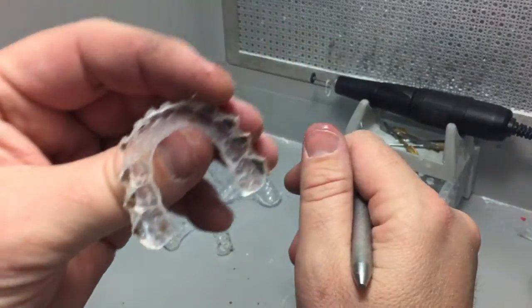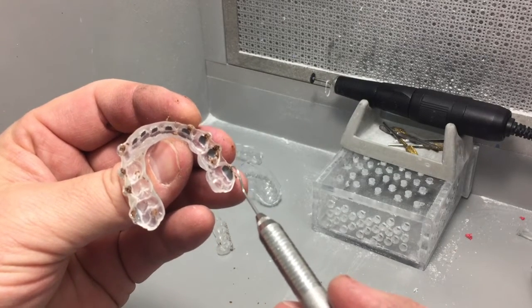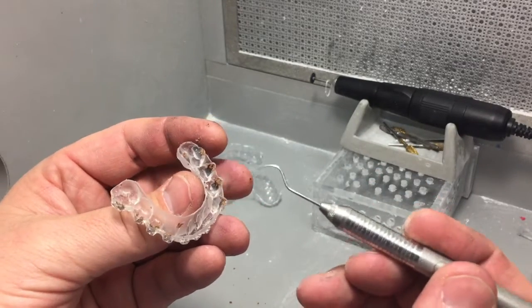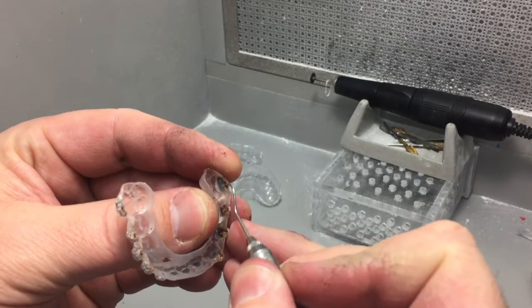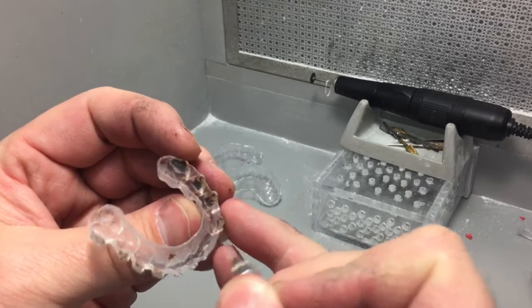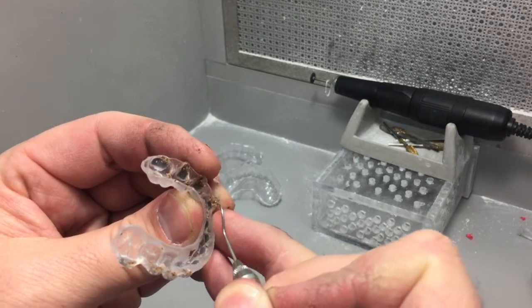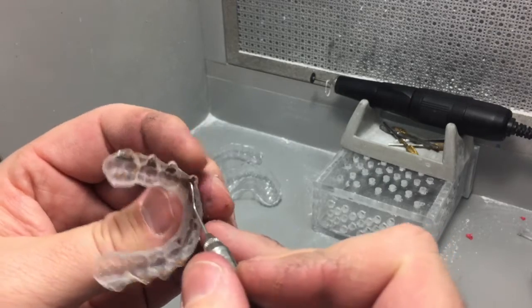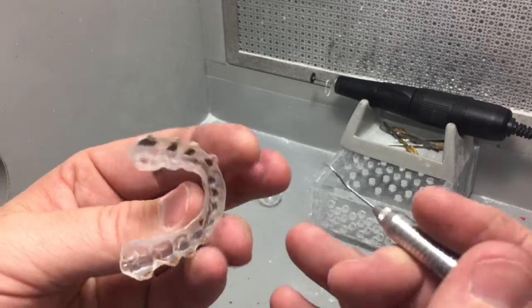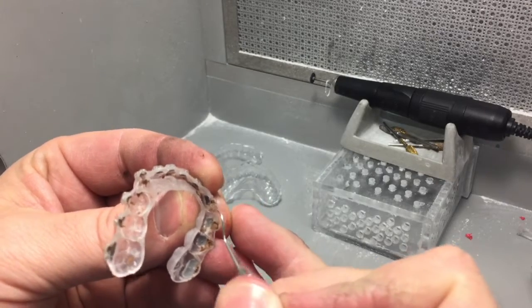If you look down inside there now, you can see that the frosting is starting to crumble. To help the process of cleaning that out, we use the same tool to clean out the dried stuff. Then we'll actually soak this again after we micro-etch the brackets, just lightly, to remove any separator stuck onto those brackets. Micro-etching lightly removes that and preps it for the flowable bond.